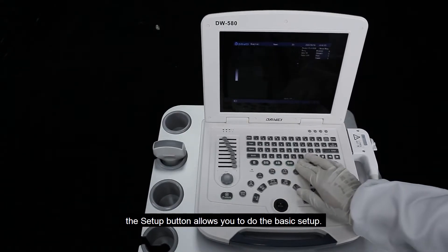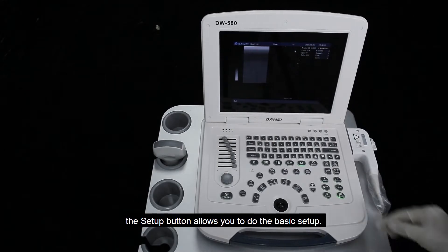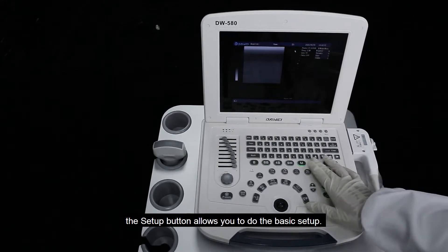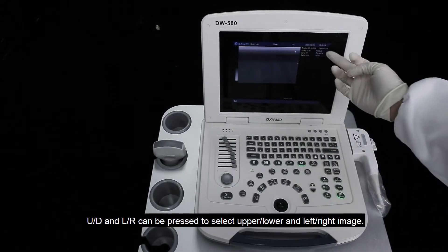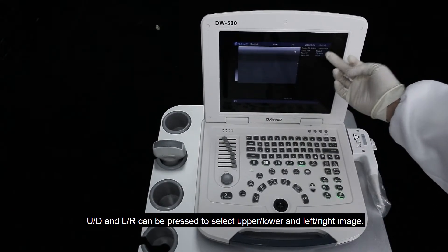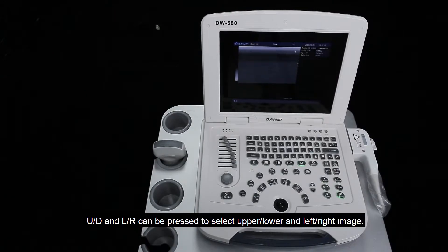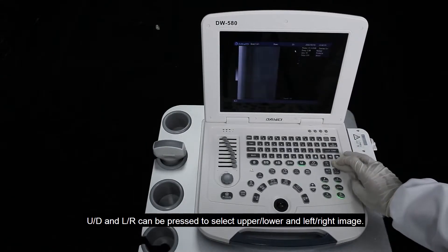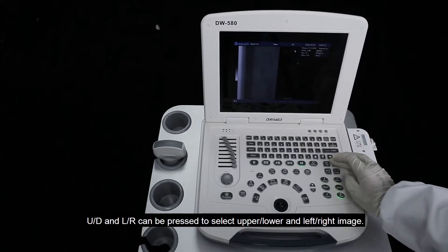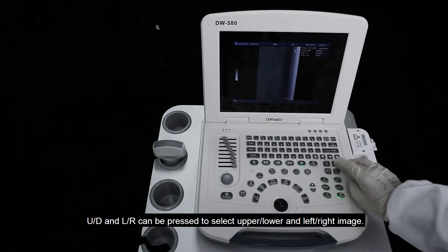The setup button allows you to access the basic setup. The up, down, left, and right buttons can be pressed to select the upper, lower, left, and right image.